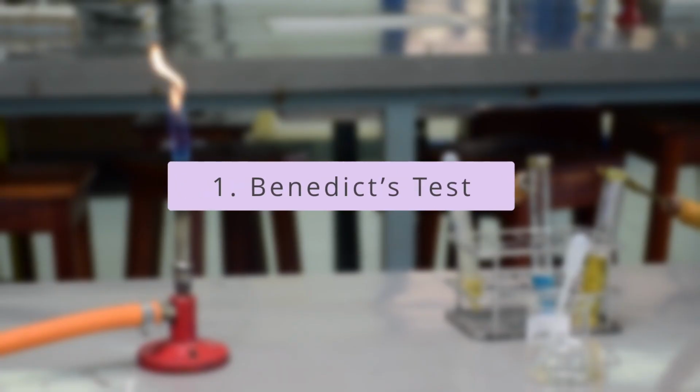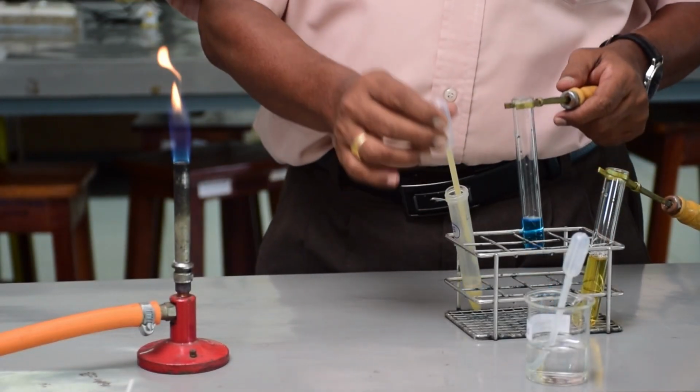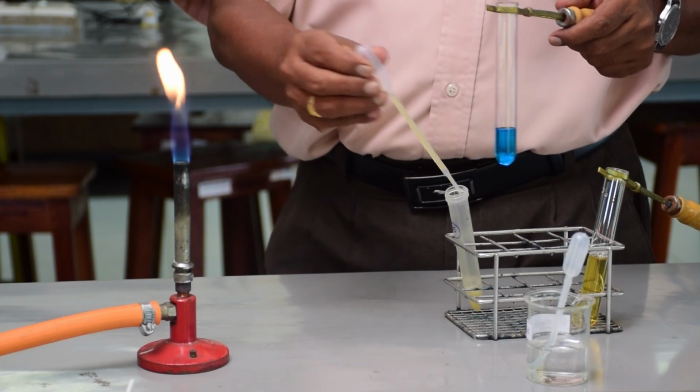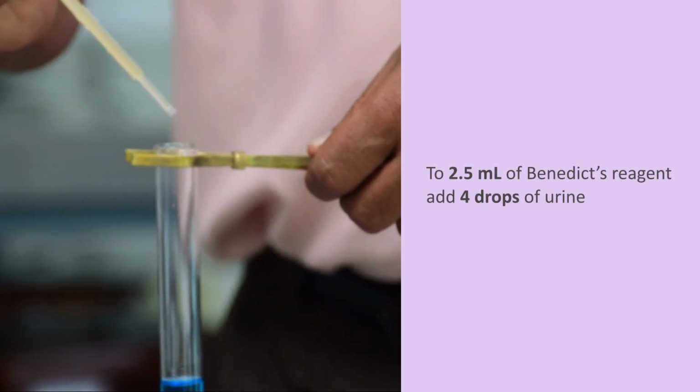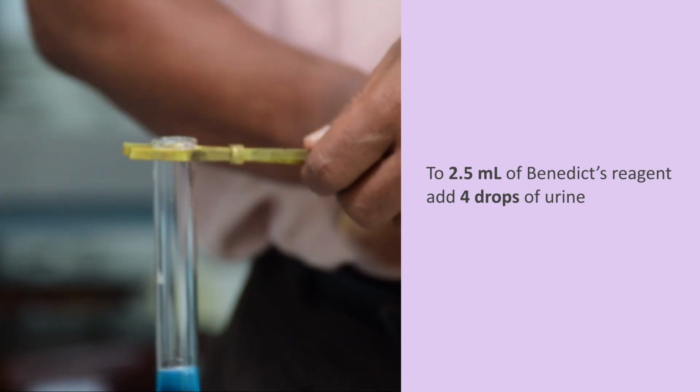Benedict's test is performed to detect reducing substances in urine, which are glucose, lactose, maltose, fructose and galactose. Now, Mr. Sujeeva will demonstrate how Benedict's test is performed. To 2.5 ml of Benedict's reagent, add 4 drops of urine.